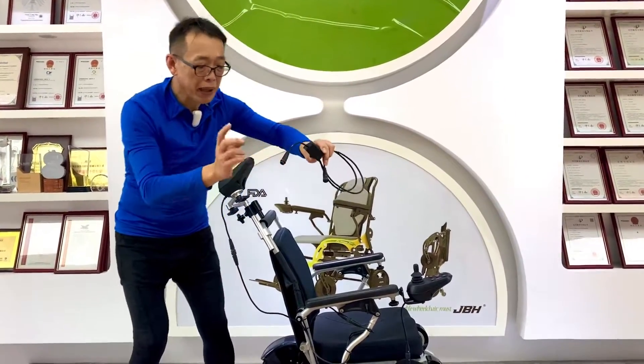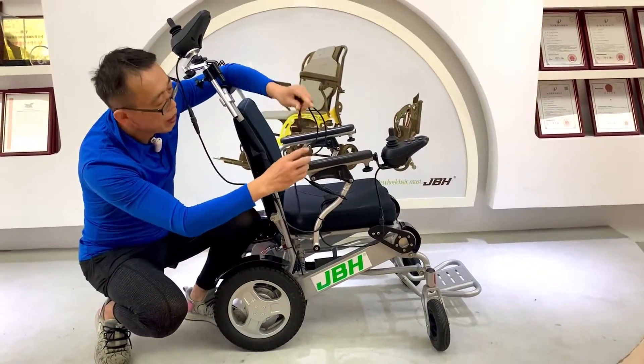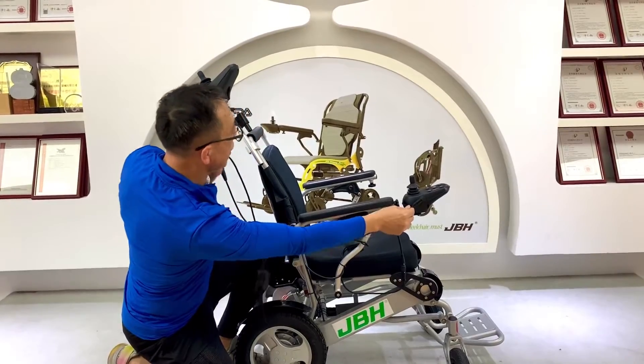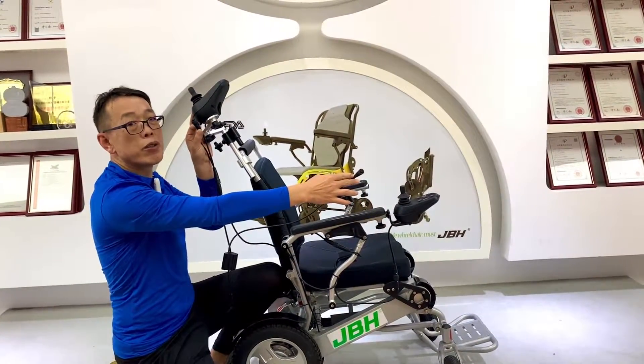The shorter side of the cable connects to the lower parts of the controller. Then the other two ends connect to the front part of the joystick and also the other side for the caregiver control joystick.